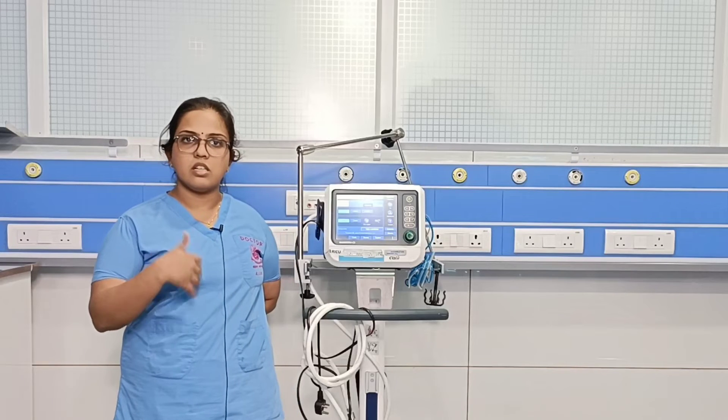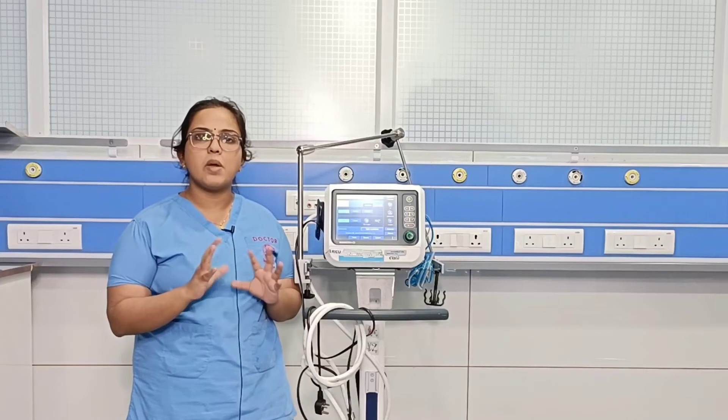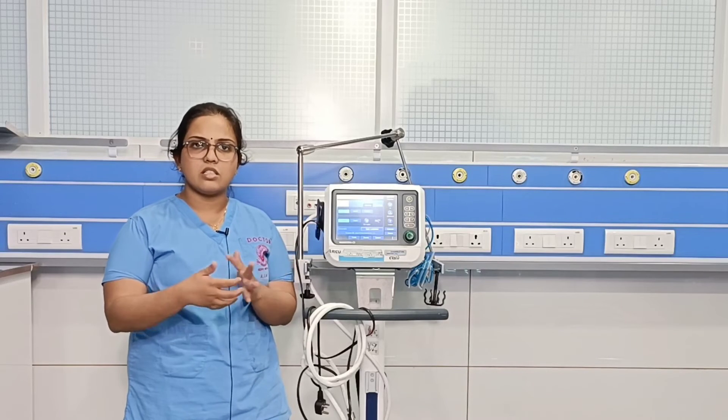Next are the spontaneous modes, where all breaths are patient-triggered. This is the last part of the weaning process. The ventilator provides pressure support to overcome the resistance of the ET tube. This is essentially Pressure Support Ventilation. If the patient shows no tachypnea, maintains adequate oxygenation and ventilation, extubation can be considered.